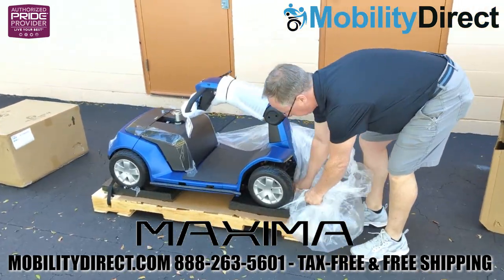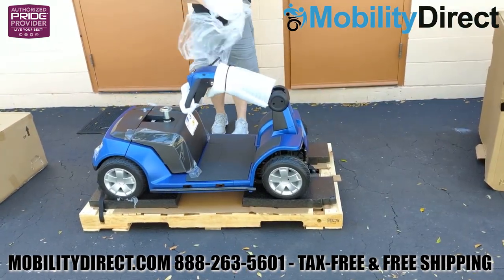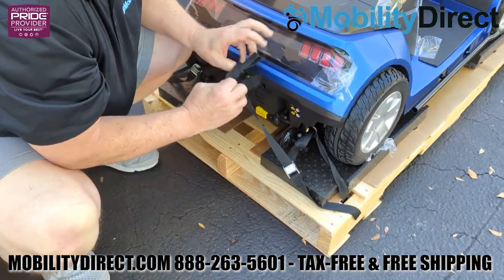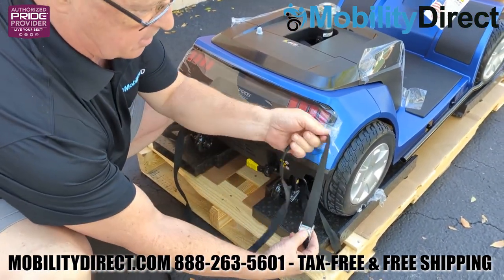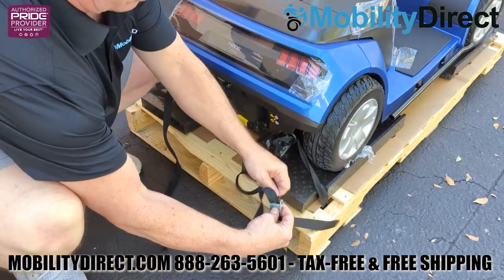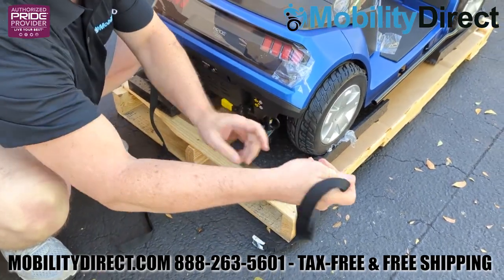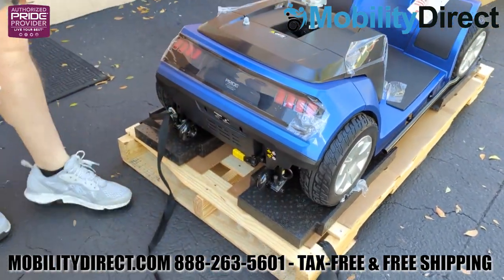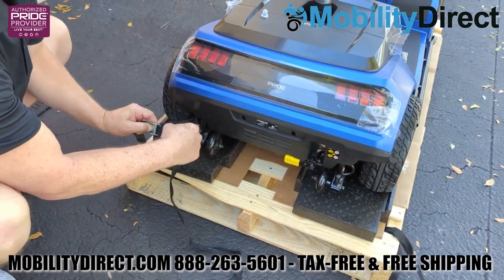Now we're just unpackaging the scooter, which comes with a plastic sheet around it. Go ahead and remove that and then begin working on the tie-down straps that are located on the front and the rear. There's a total of four tie-down straps. The straps themselves are tied in a knot, so first you want to untie that knot and then loosen up each strap.